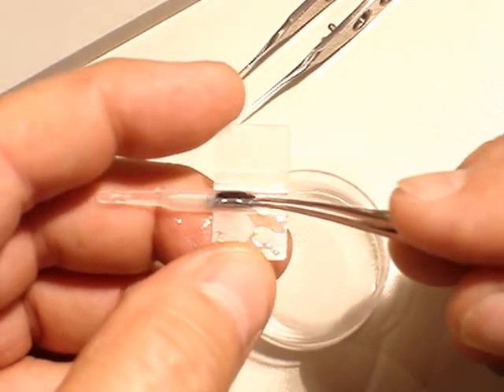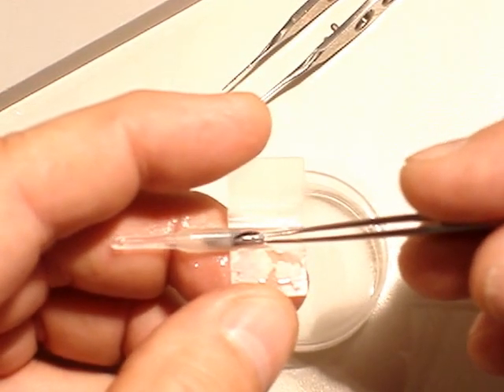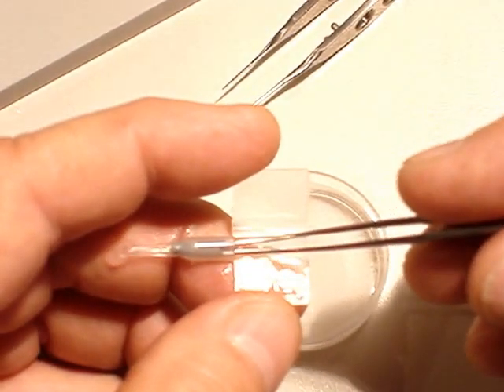And if you do that slowly, look. The implant will fold on each other. This is very nice.